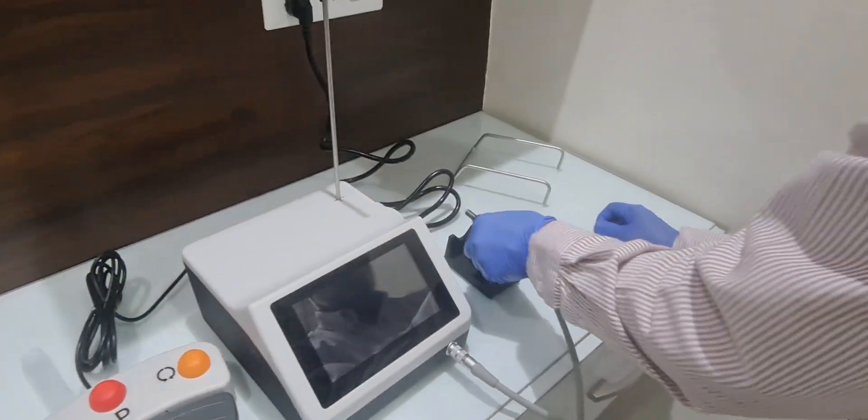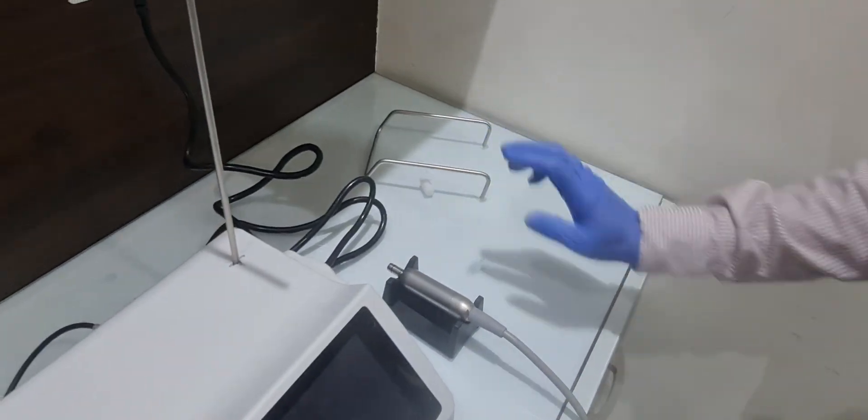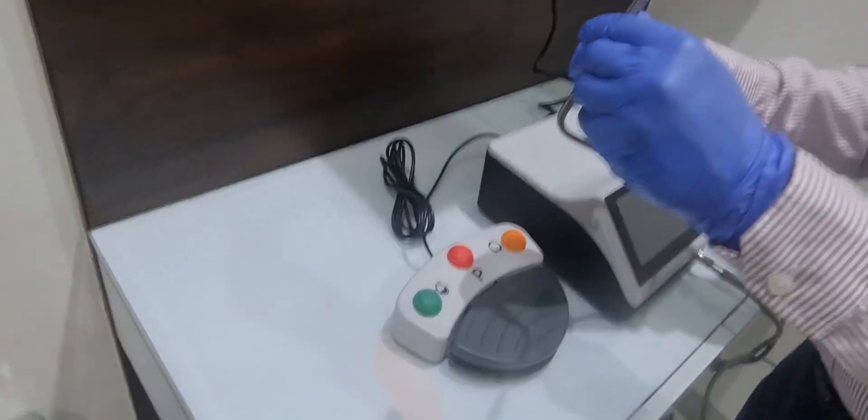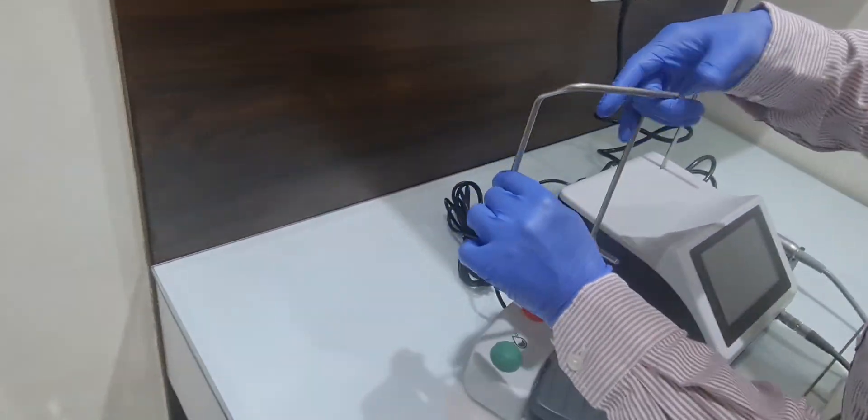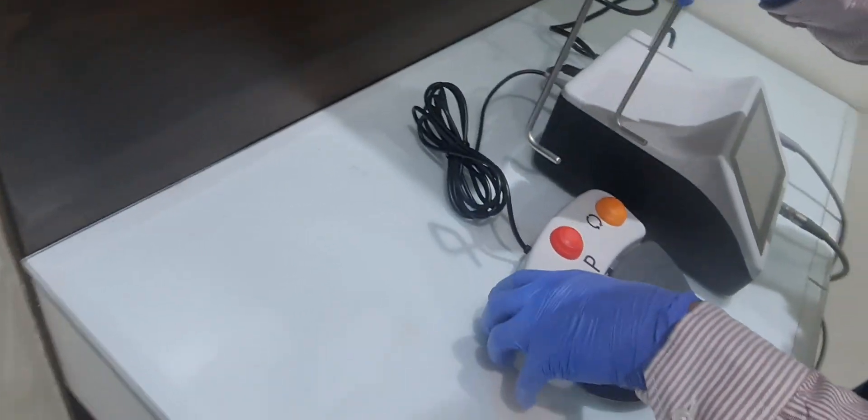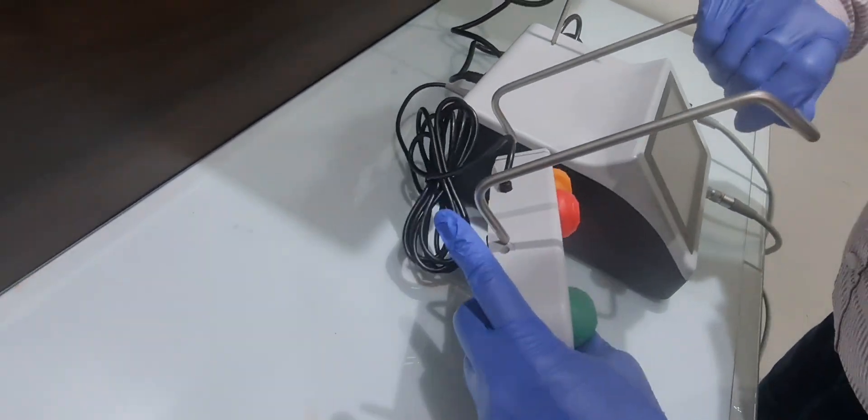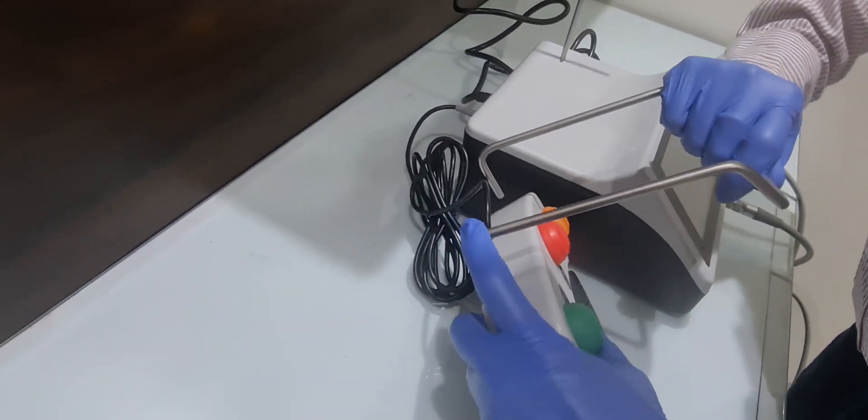And here is the stand. I will show you the working. This is the foot control stand, very easy to assemble.